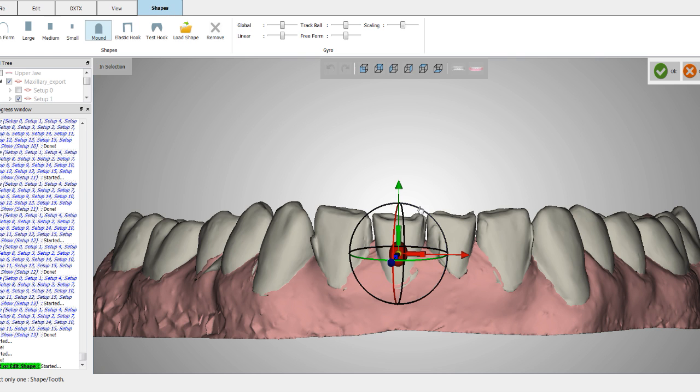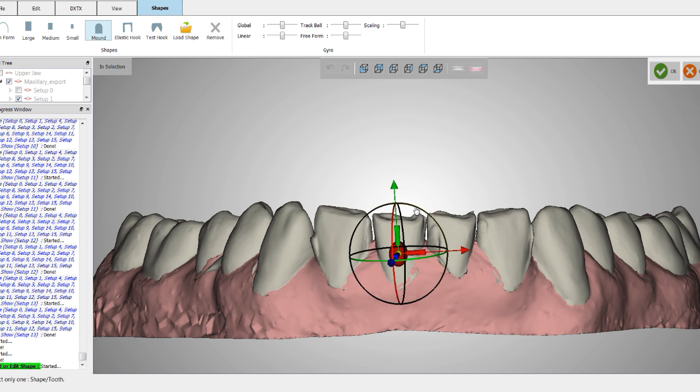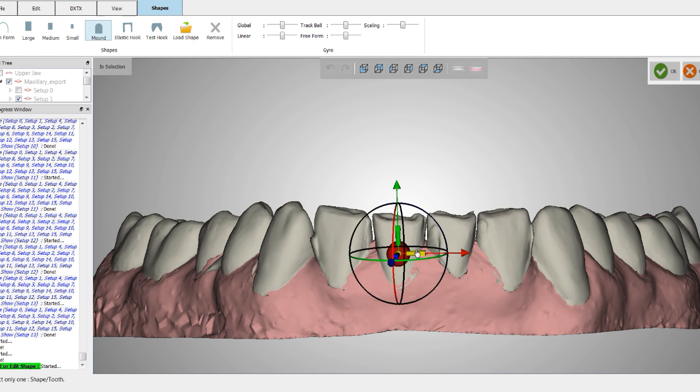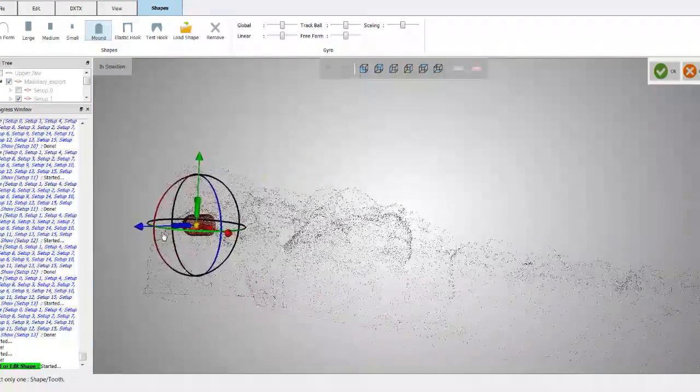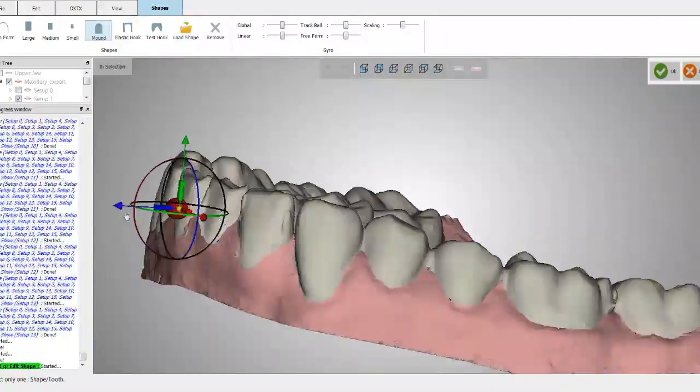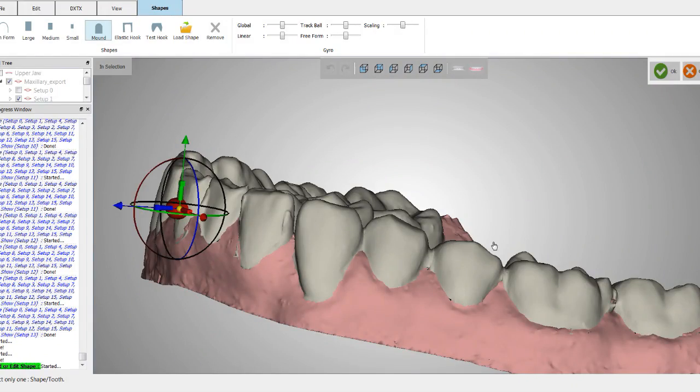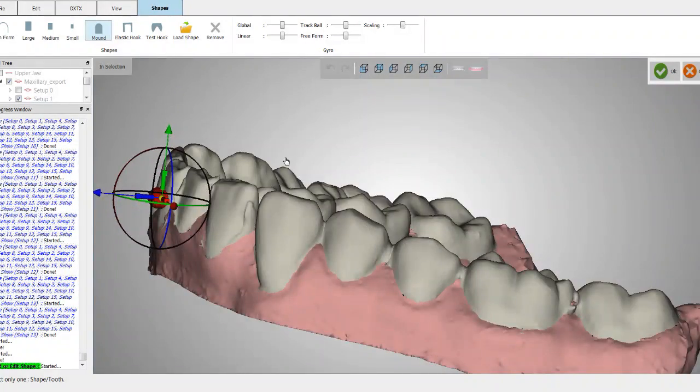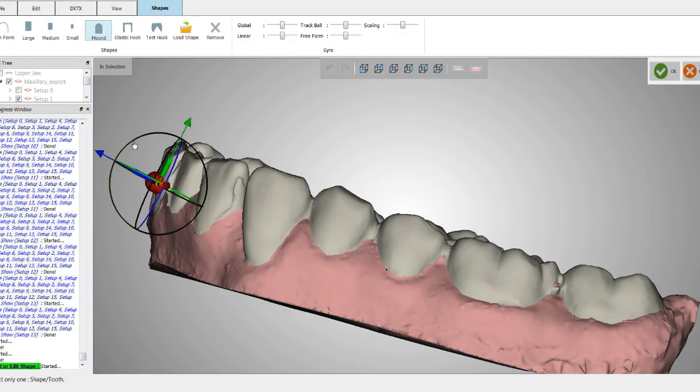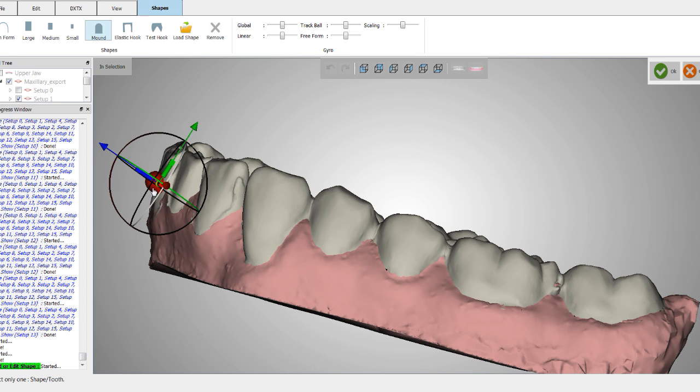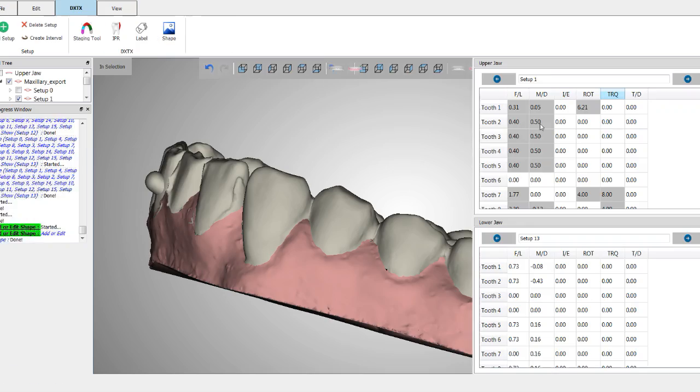And you can also reposition the attachment anywhere you'd like. Now for extrusion, I'm going to make this a little more of a horizontal attachment and I'm going to rotate this around and I am going to angle this so that that aligner can push on that surface there as much as possible. Then I'm going to click on okay.